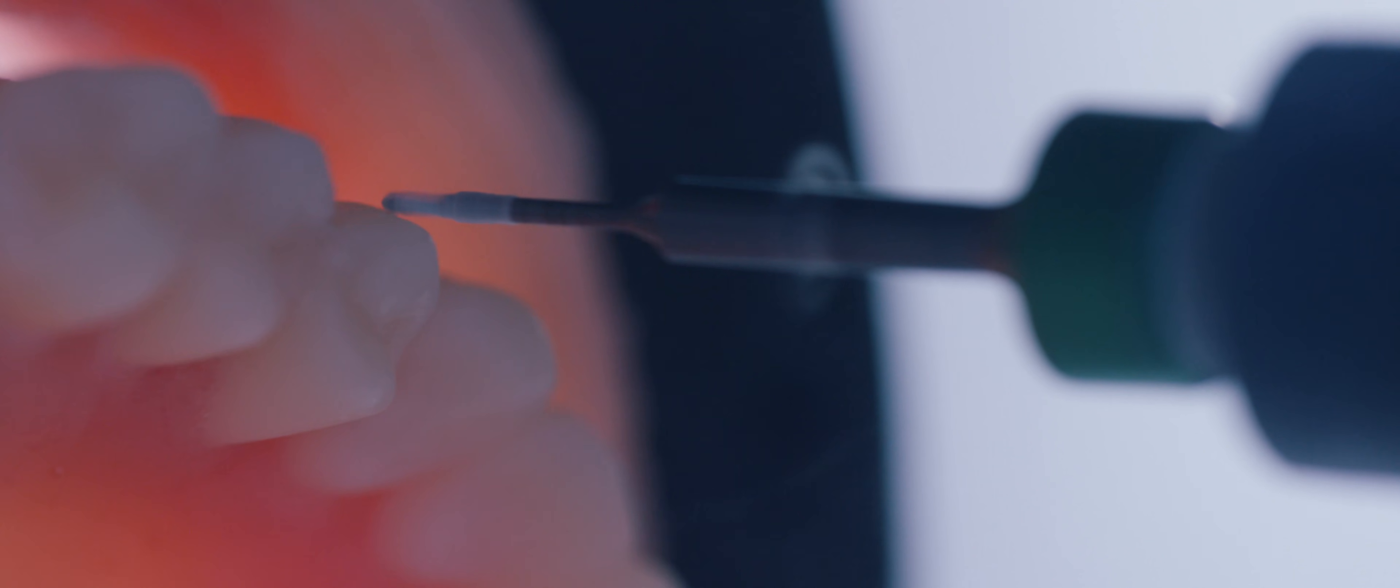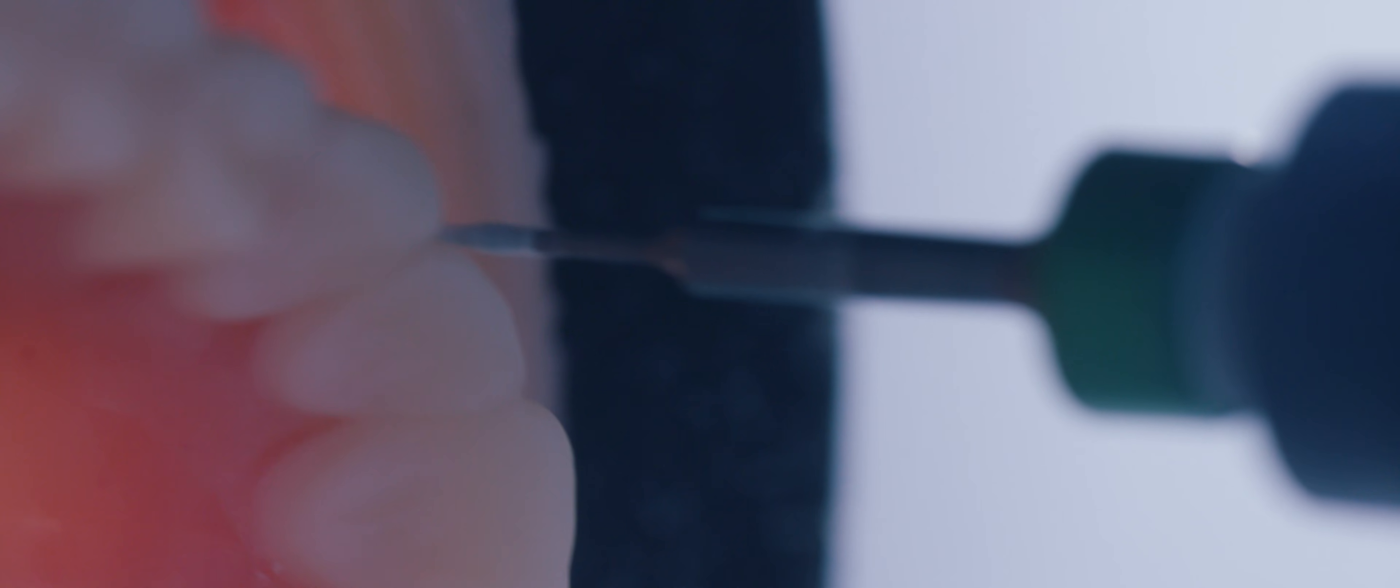Finally, the milled denture just needs polishing. This process reduces manual working steps to a minimum, true to the motto: design, mill, finish.